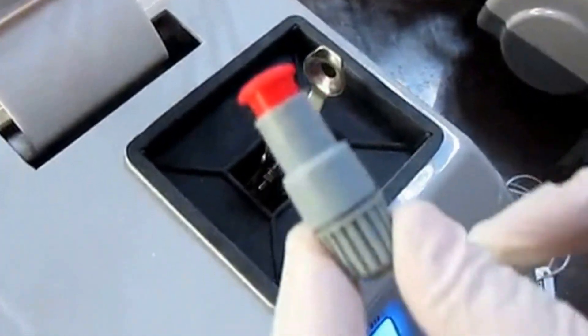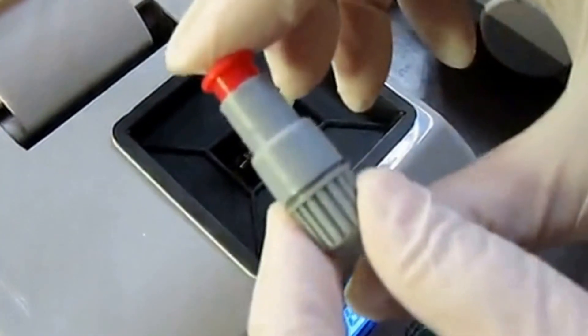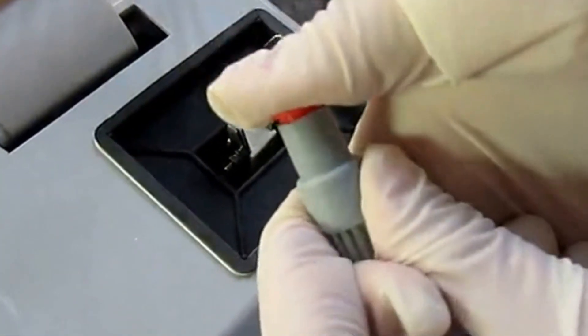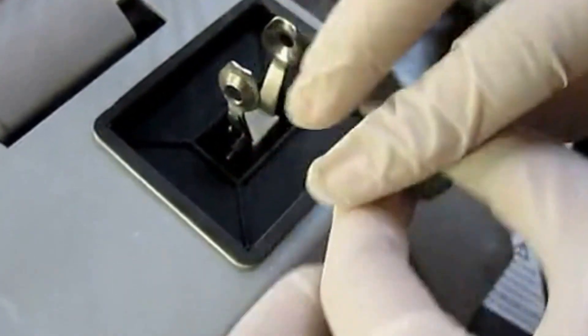For activatable capsules, you should press to activate them before use.